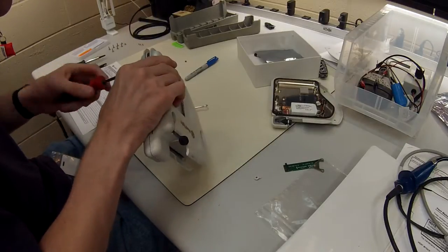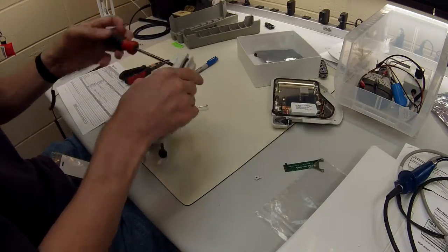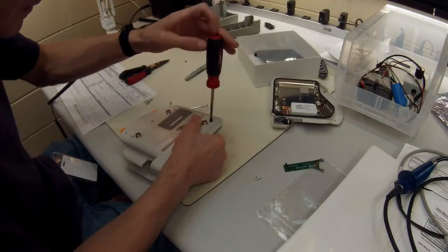Not much to it at all. So it's a very easy process, very expensive battery, but everything in healthcare is expensive, right? So thank you guys.